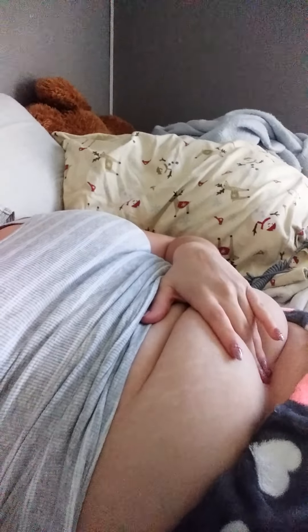I am not the smallest of girls — I do have a little bit of a pouch right here — but where I'm going to be looking is kind of between where your pubic hairline is and under your belly button. I can find my own heartbeat on both sides, kind of where your ovaries are, but I seem to find the baby down in the middle.